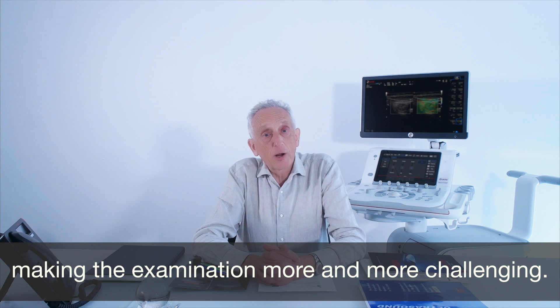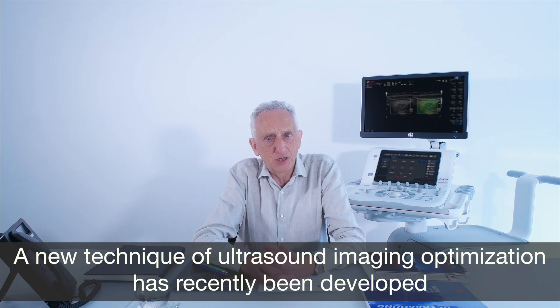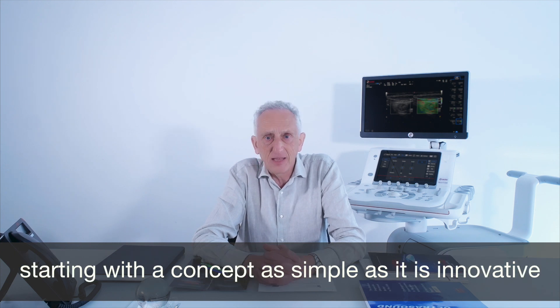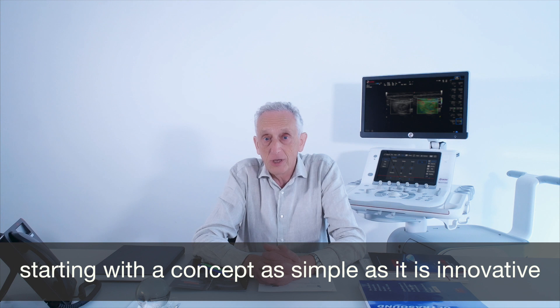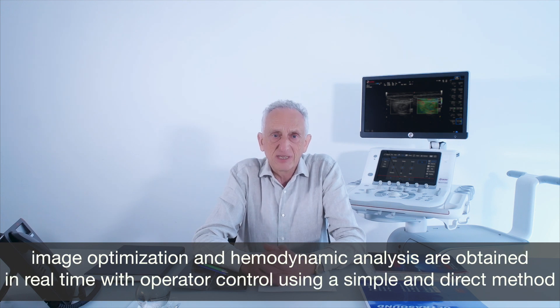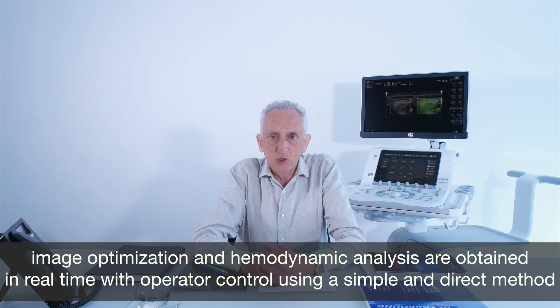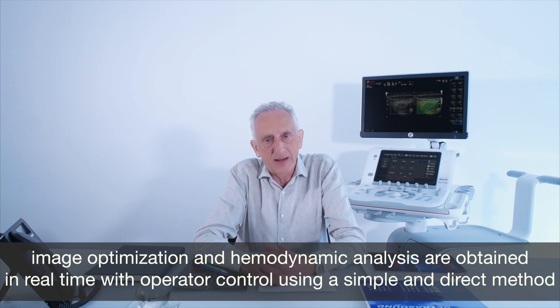A new technique of ultrasound imaging optimization has recently been developed, starting with a concept as simple as it is innovative. Image optimization and hemodynamic analysis are obtained in real time with operator control using a simple and direct method.